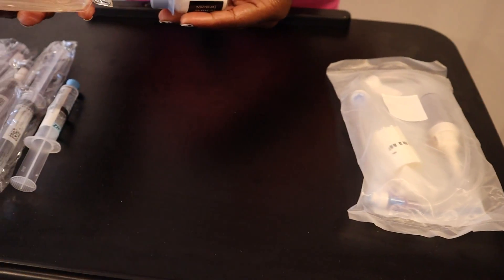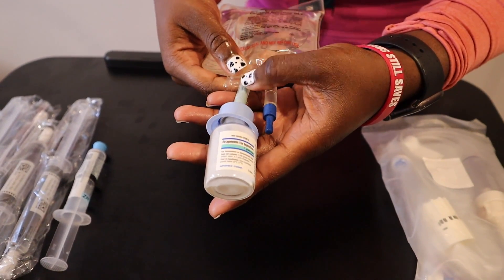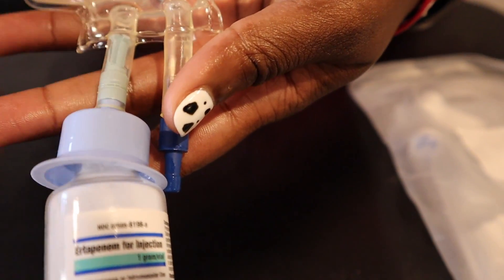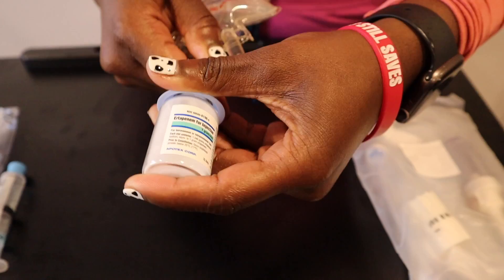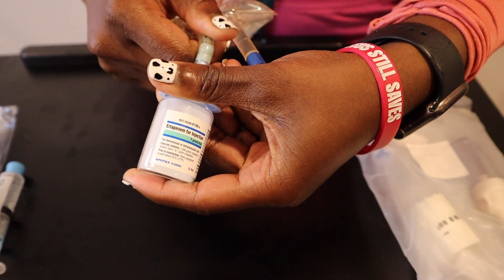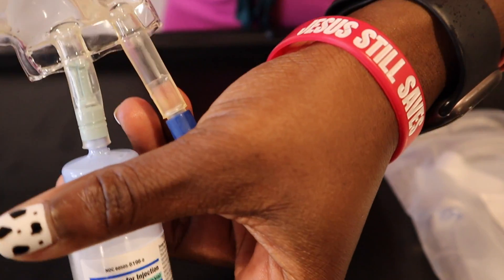So you're going to begin by breaking the seal, which is located in between the bag and the vial. The seal can be broken simply by bending it — you'll know when the seal is broken because you will hear a pop or snap.